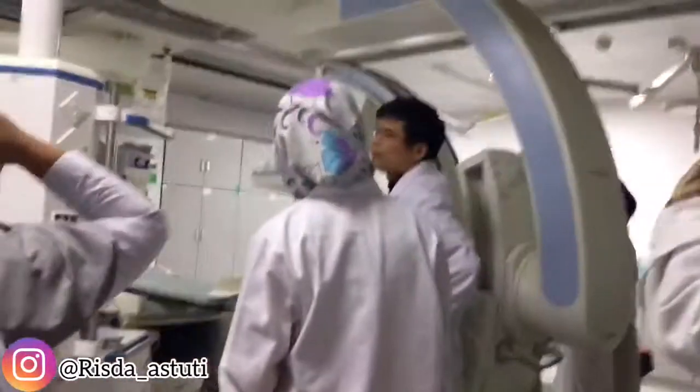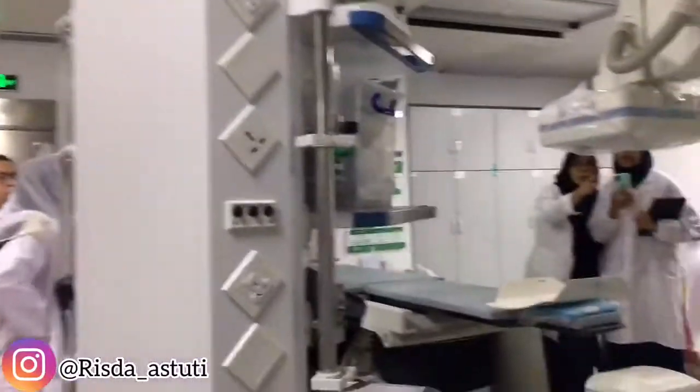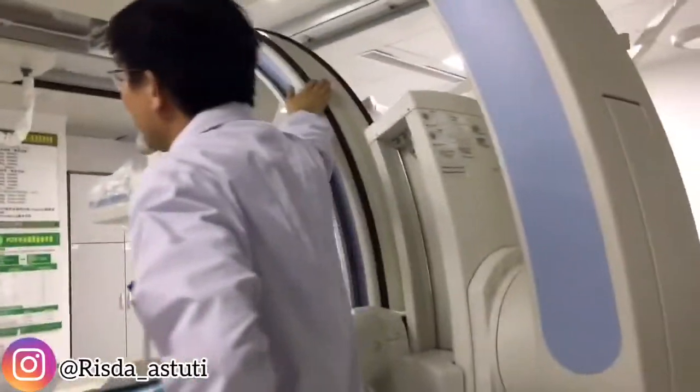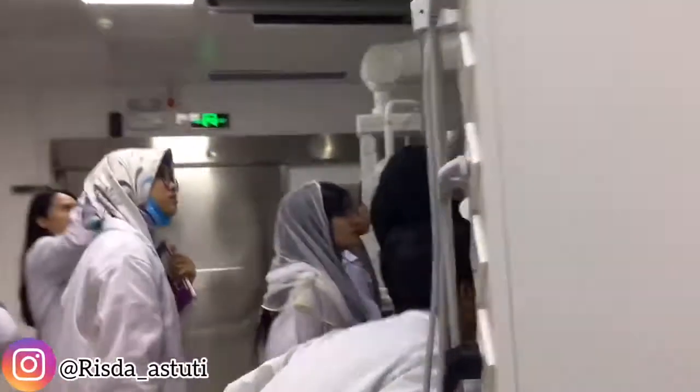We bought it in 2015. This is the old one, this is the new one. And this is another type — because there's a suspension. The C-arm structure is suspended from the ceiling.